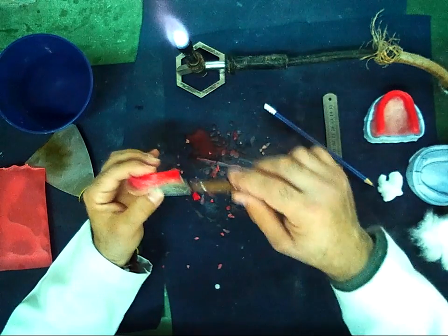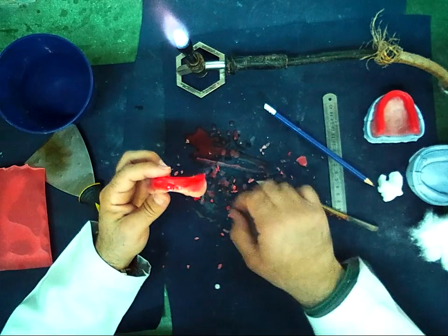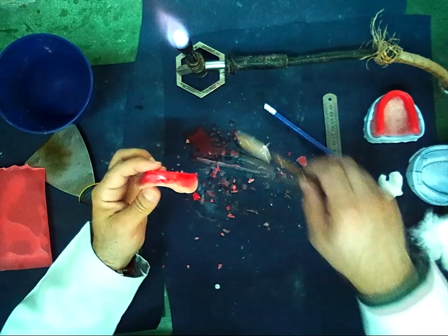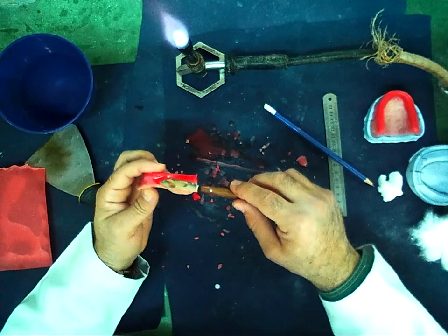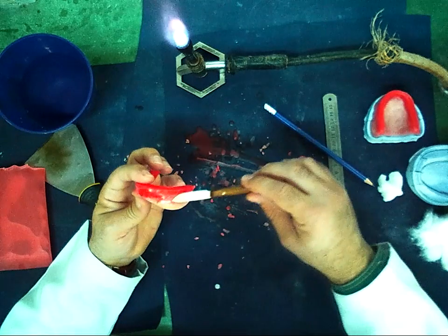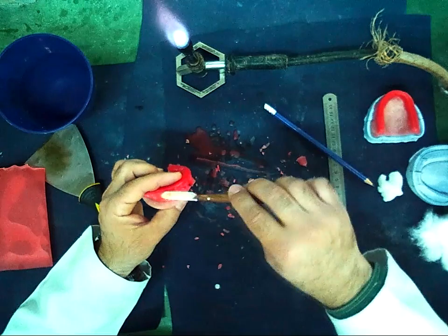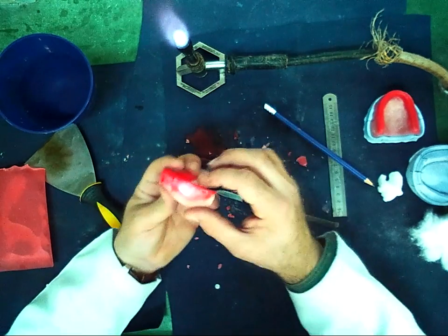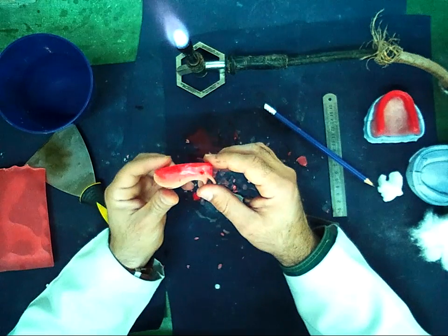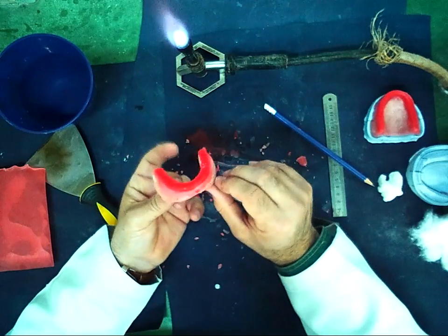As we see, the wax is easy to deal with, only using the wax knife and burner. Now I fill the space between the wax and the record base. Now I should take my measurement.